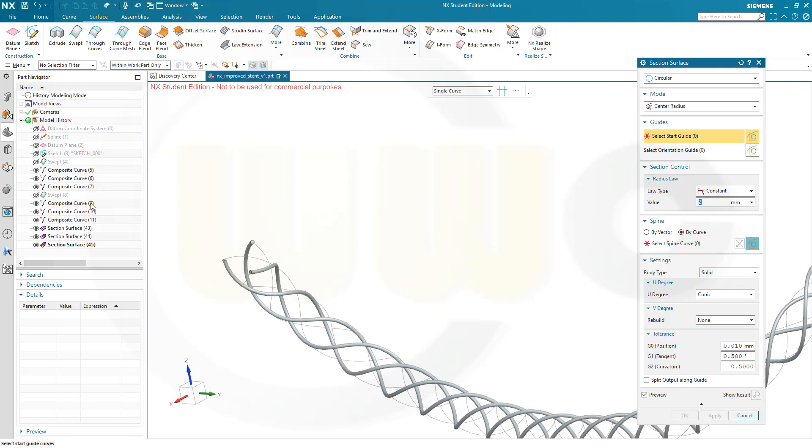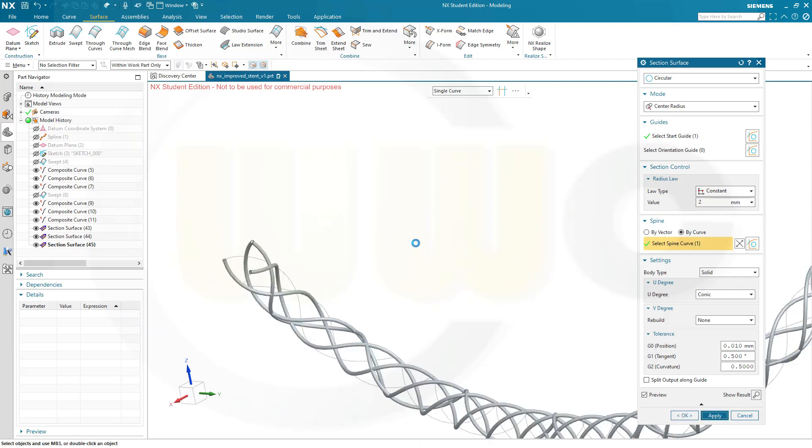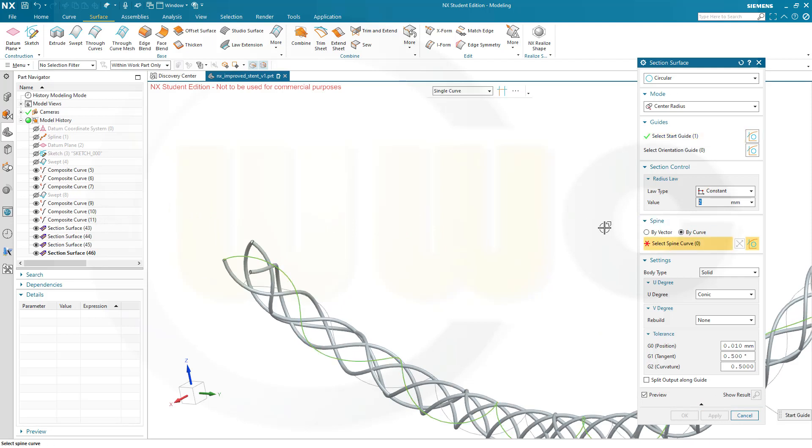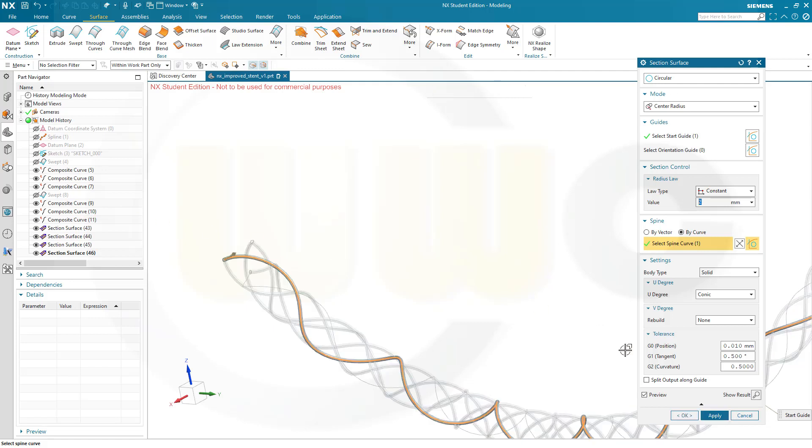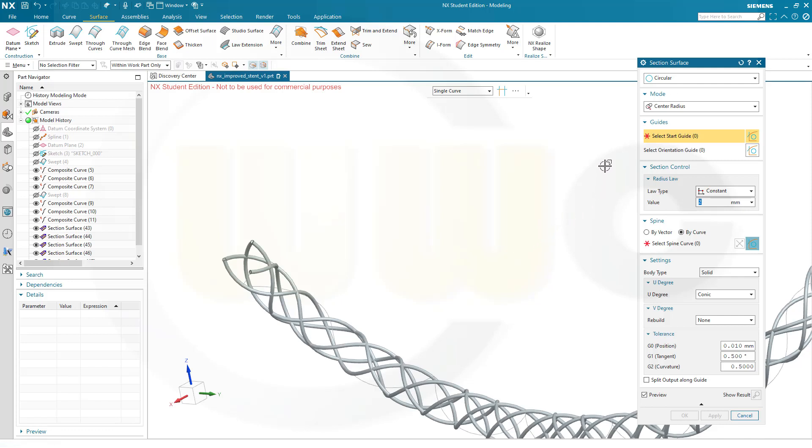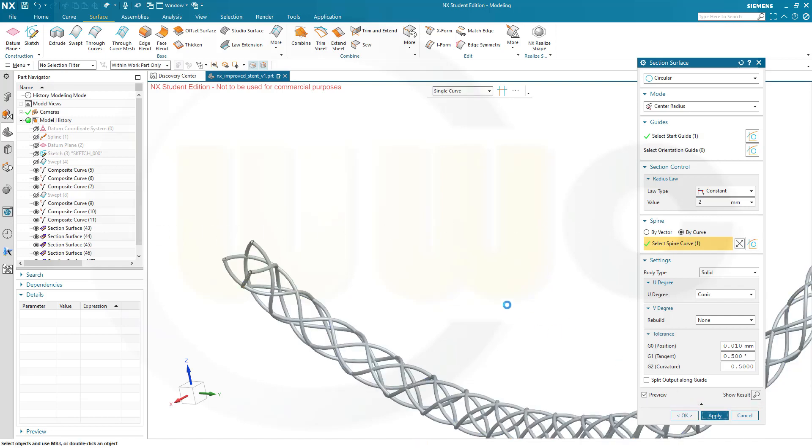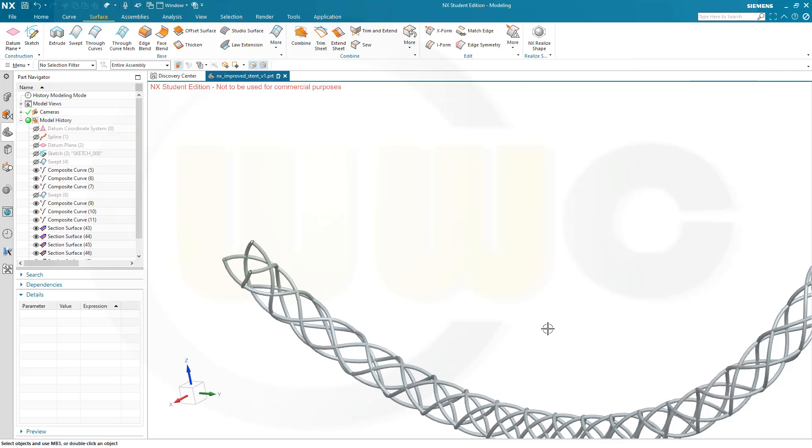Then the fourth one. It's pretty easy and fast to do, much more convenient than the arc and sweep method. Last one, and confirm, and cancel this out.